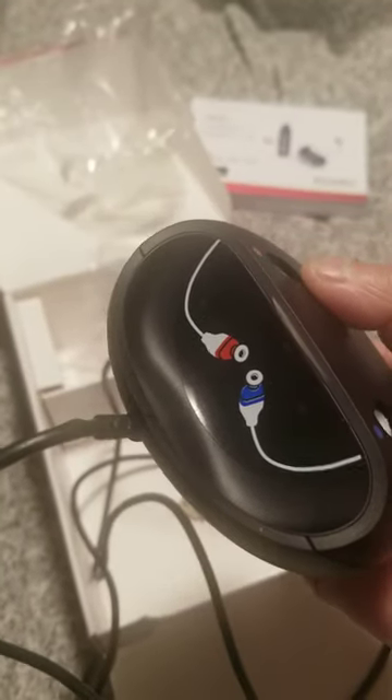The wall charger — and the charger has an indicator that shows how to charge it, indicated by the color.